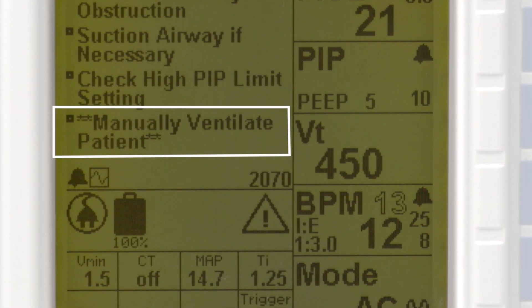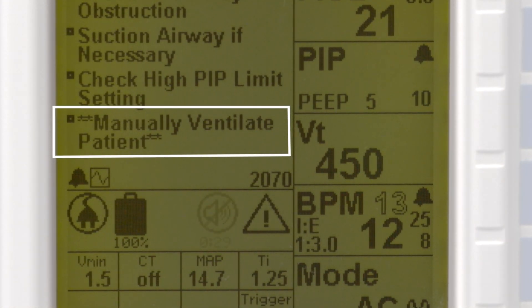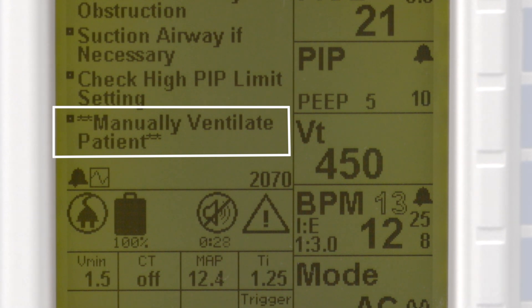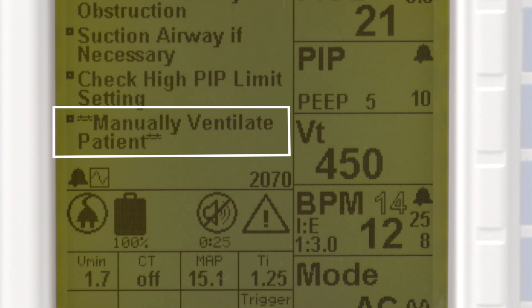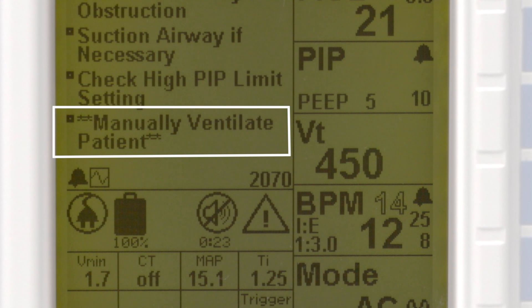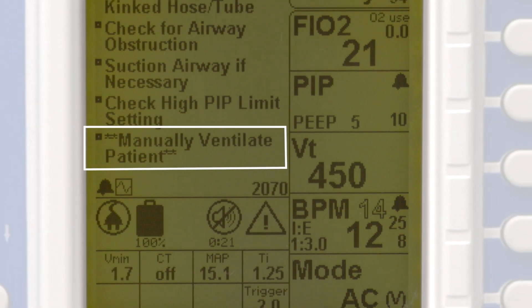At the end of every Smart Help set of instructions is a bullet that begins and ends with two asterisks. This is the fail-safe instruction of what action to perform in the event the user is unable to resolve the alarm.